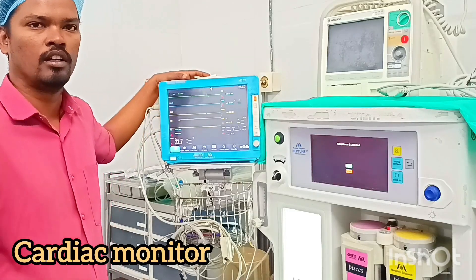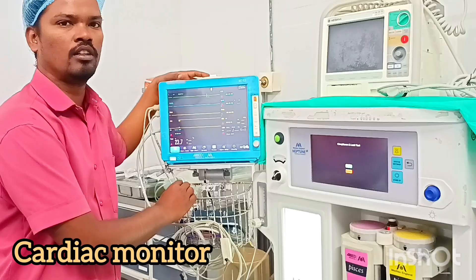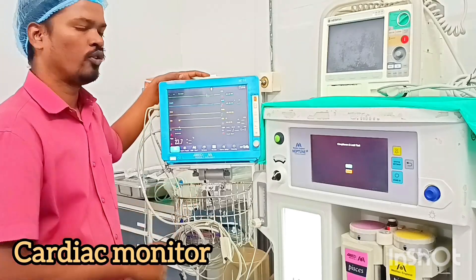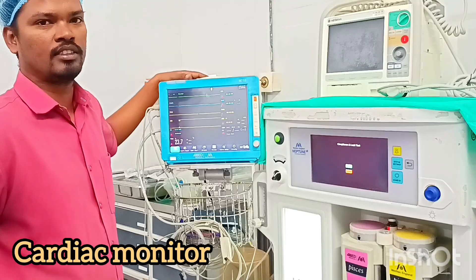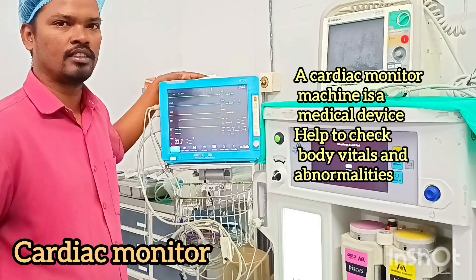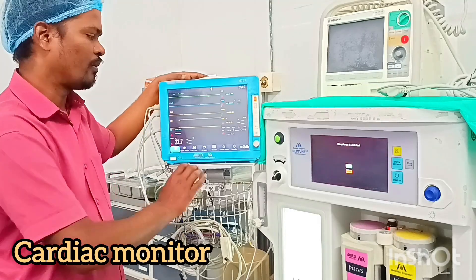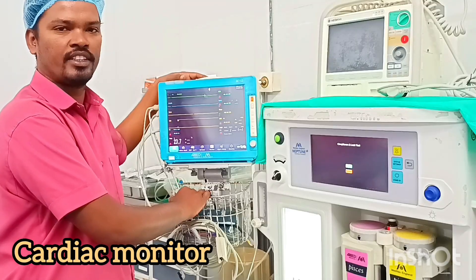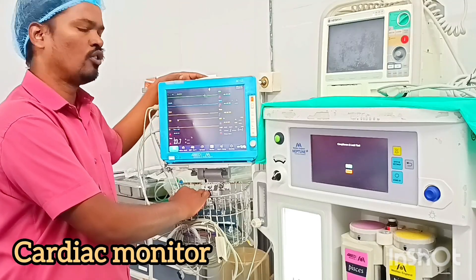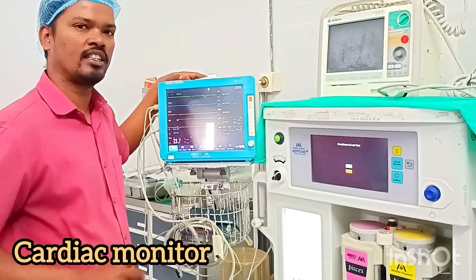Hi everyone, today we will see about cardiac monitors, which help to see the body vitals. The cardiac monitor is a medical device that analyzes body vitals and abnormalities. Normally, cardiac monitors are used in the operational theater, ICU, and high dependency ward. We will see what things we check in the cardiac monitor.